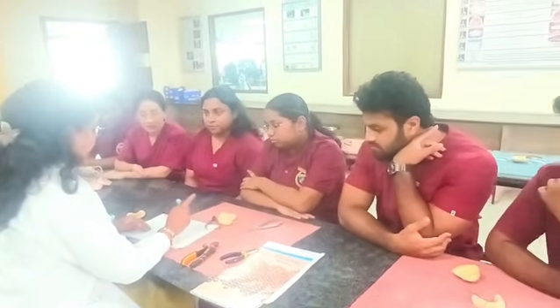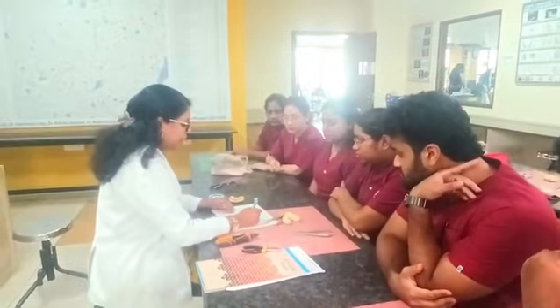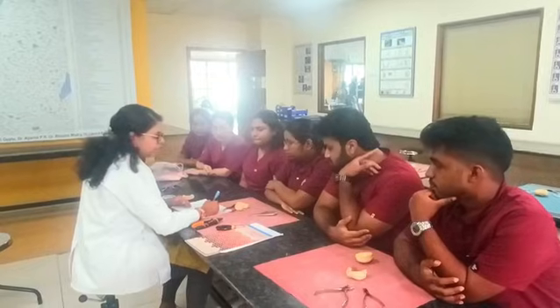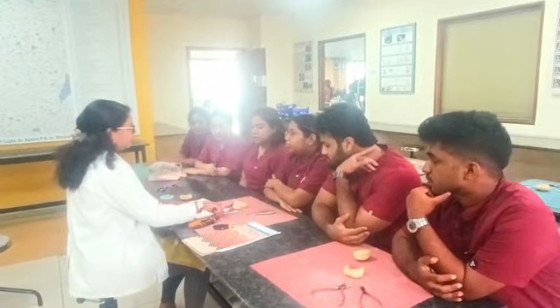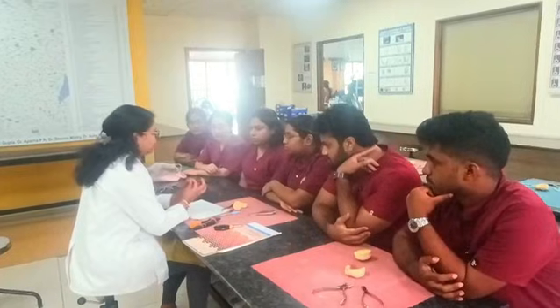Next is your arrowhead. Your arrowhead is going to engage your undercut area. So this is your undercut area, where your arrowhead is going to engage. So you are going to start with which gauge of wire? Yes, you are going to take a straight 0.7 mm wire.